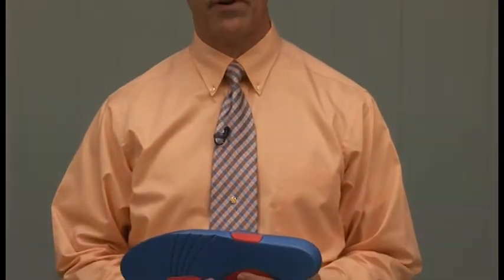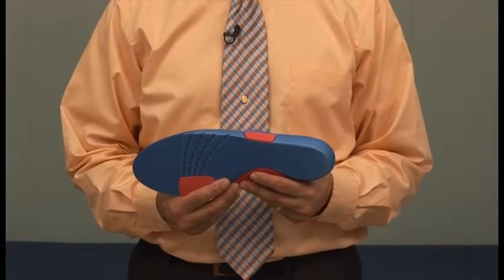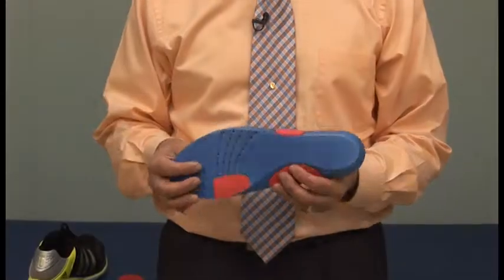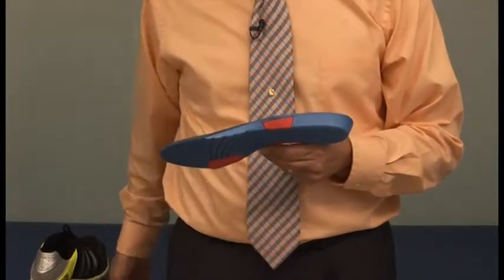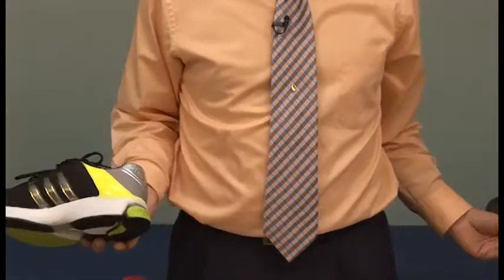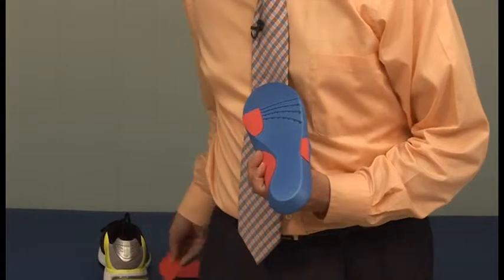The Hoke orthotic was designed to create a triplanar environment that matches each of the structural imbalances we've identified in our clinical examination. In the sagittal plane, the forefoot is lower than the heel, which is going to naturally match the shoe, which often also has a thicker heel section than forefoot. When we're using this in a shoe that has a slightly lower heel, the clinician may need to add a heel lift, which has been included with your device.